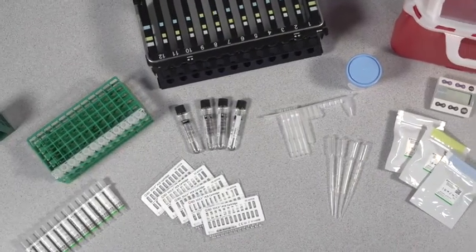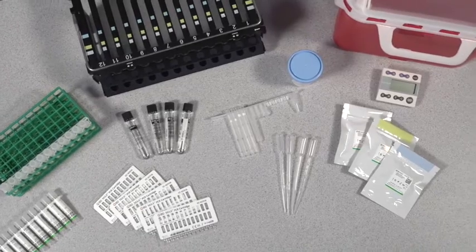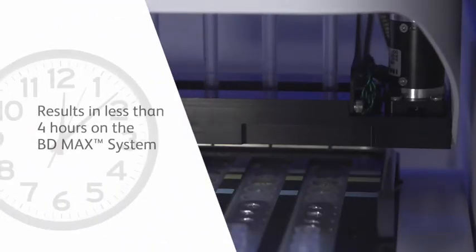The BD MAX MDR-TB Assay performed on the BD MAX system can provide results for 24 specimens in less than four hours, as compared to traditional culture methods and drug-resistance tests, which can take weeks.